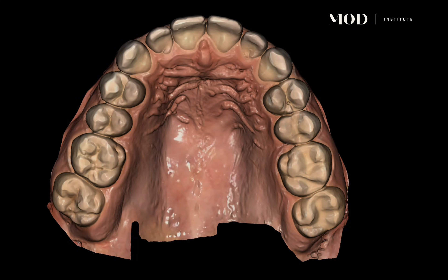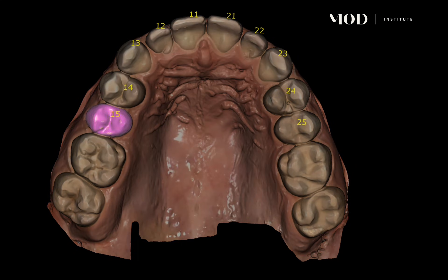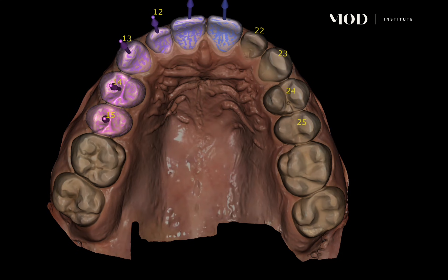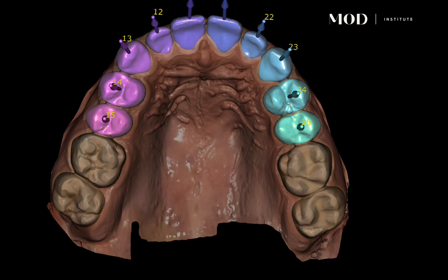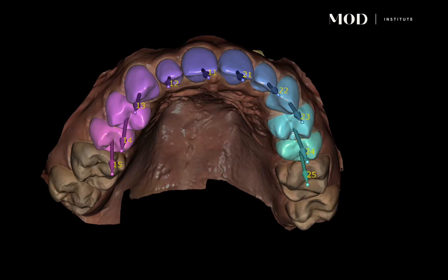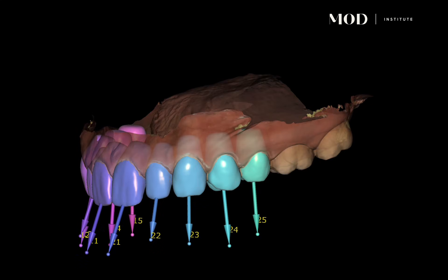Here we can see this in real time — it's thinking, trying to identify premolar forward, which is what I told it I wanted to do when I set this up as a mock-up. It's identified those teeth using FDI nomenclature — for my American colleagues confused by those numbers — and it's now starting the auto segmentation, identifying each tooth in real time.